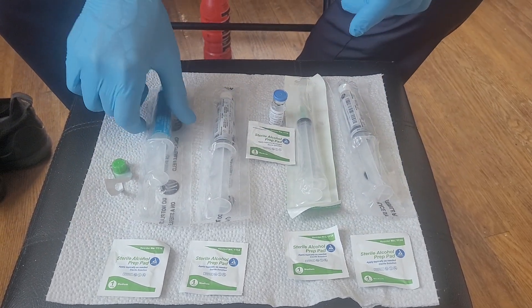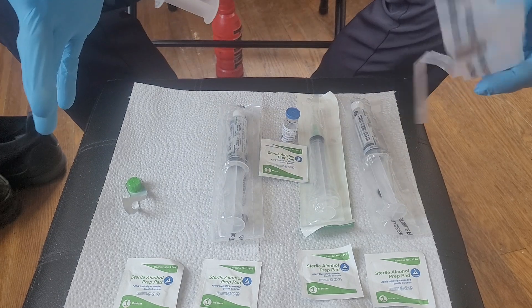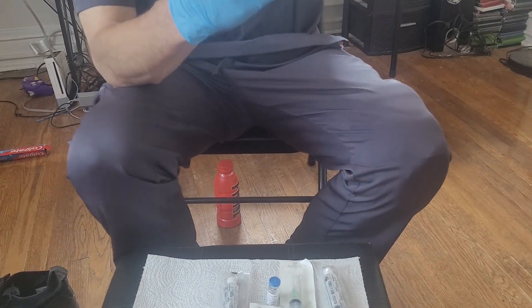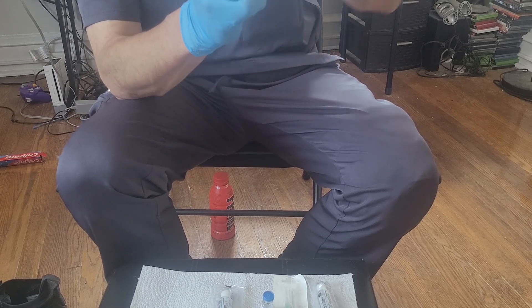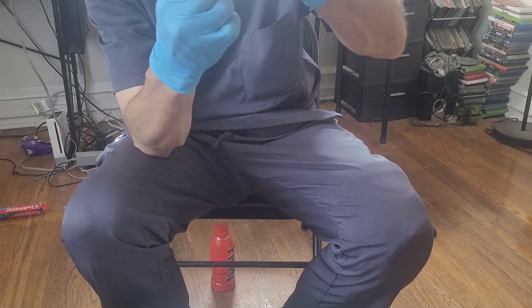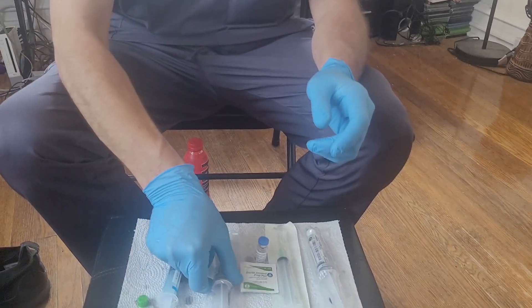First we'll start off with our flushes. This is a heparin flush that's perforated down the side. Open that up, first thing you're going to do is give it a tap — that brings the air to the top. Then loosen the cap by going back and forth; these caps are not threaded, so it's just sitting on there loosely. Crack the seal by slowly pushing the air out, and once you get some fluid, that's prepped — cap back on, back down to your fresh surface.